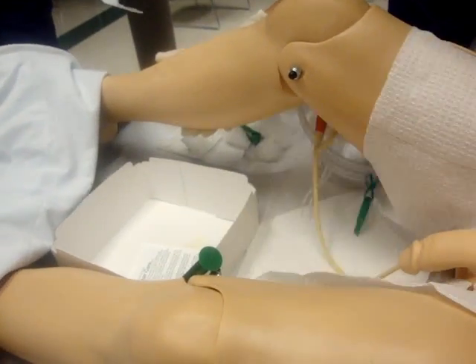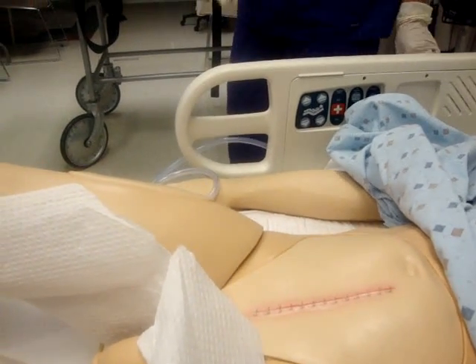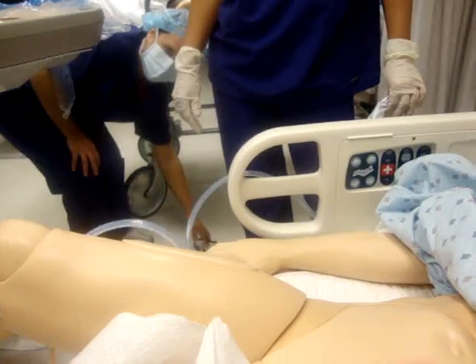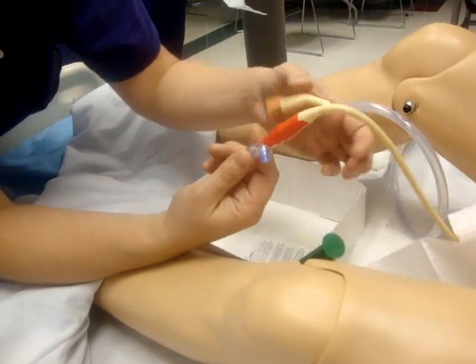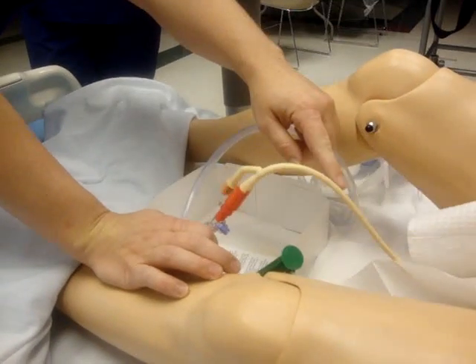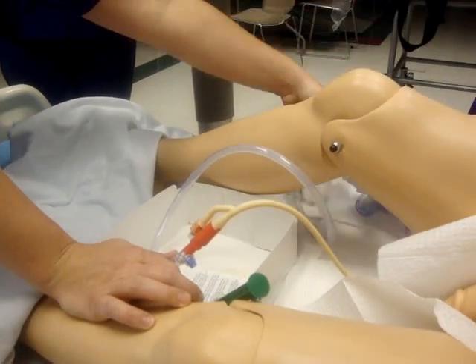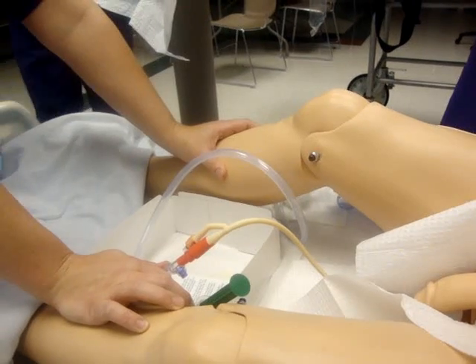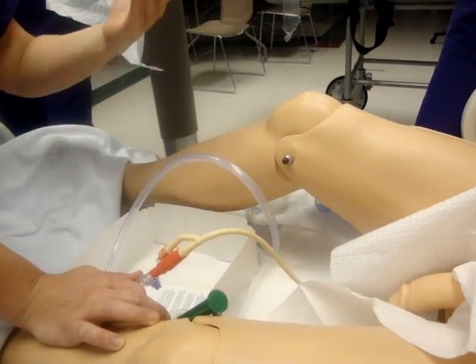Sometimes you have to irrigate the bladder — where would that go? Through here. This disconnects — this has a little perforation right here that tears off where any catheter can hook up to that drainage bag. This is just the collection bag. So if you can't get this catheter in, you can still use this bag — you just have to disconnect it. You'll also see them just do straight caths for a lot of procedures — OB procedures, some surgical procedures — they'll just put a catheter in to drain the bladder and pull it right back out. It won't have a bag.